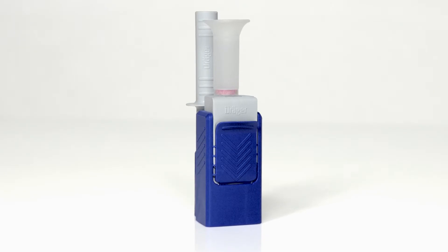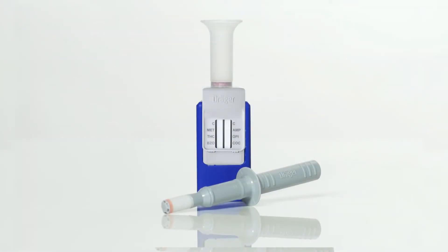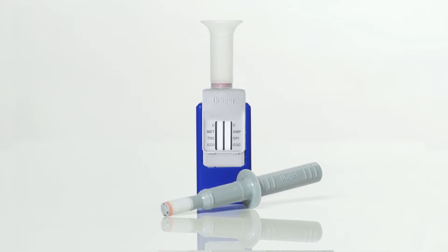At the same time, we'd like to familiarize you with the testing procedure. With the single-use test kit, you can test a person for up to six substance classes at the same time.